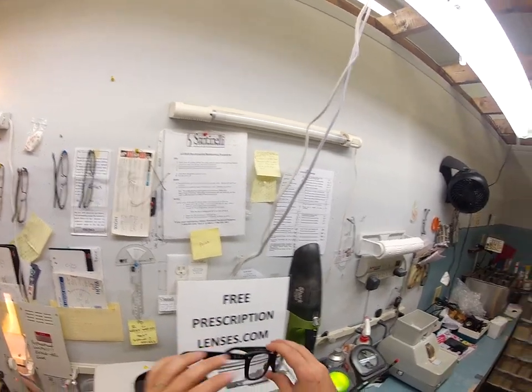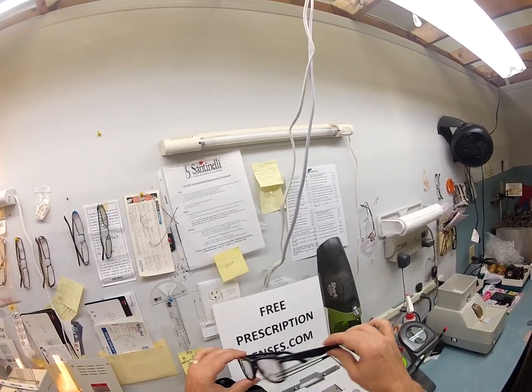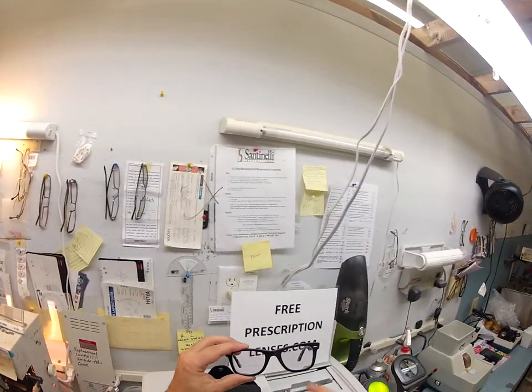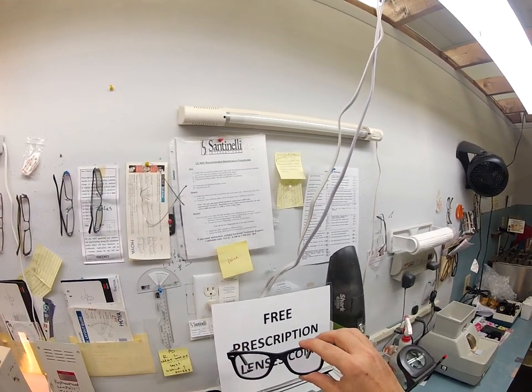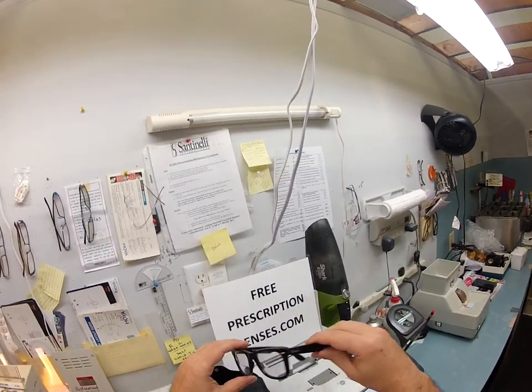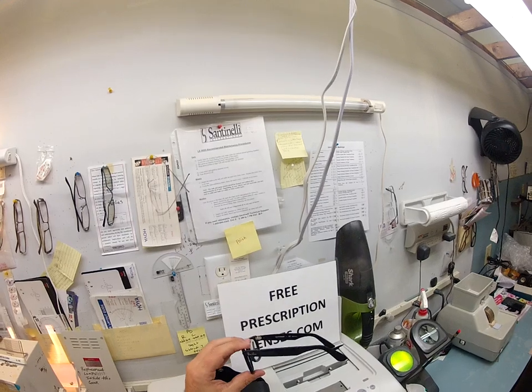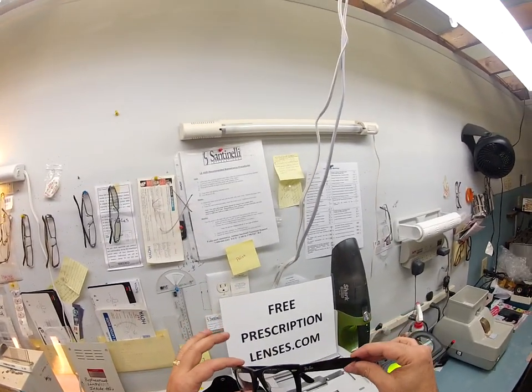Christopher in Norfolk, Virginia — you're going to be a lot cooler now rocking these things. It takes 30 to 45 seconds for them to darken underneath the lamp, and a little bit longer — 45 seconds to a minute — to turn light again once you're inside. Thanks again, Christopher, and this is one of the many many ways that I can bring that love and feeling back to glasses. Thank you.